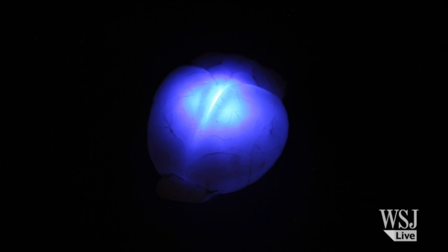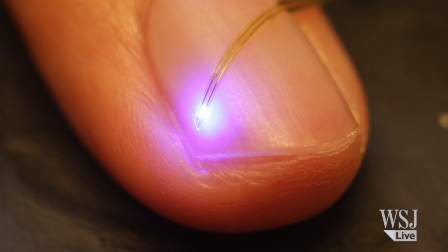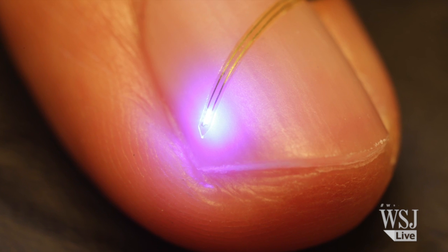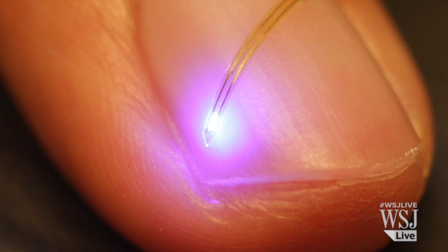At Washington University School of Medicine in St. Louis, a team has developed this LED light that is thousands of times smaller than the kind you might find in a flashlight.